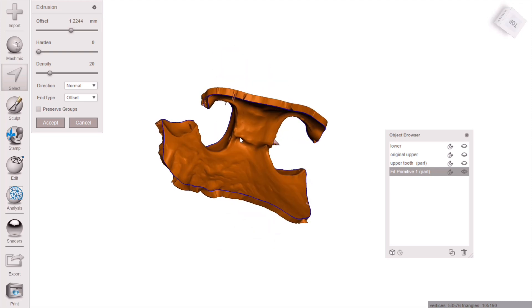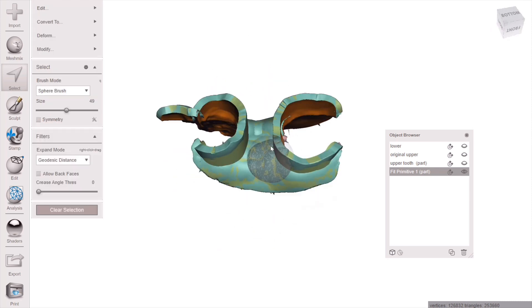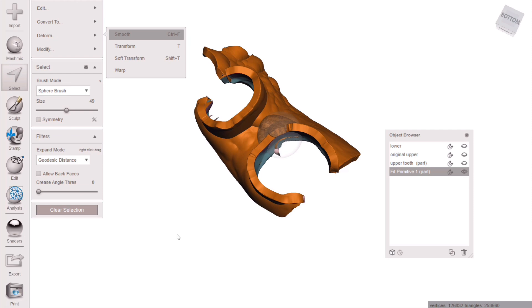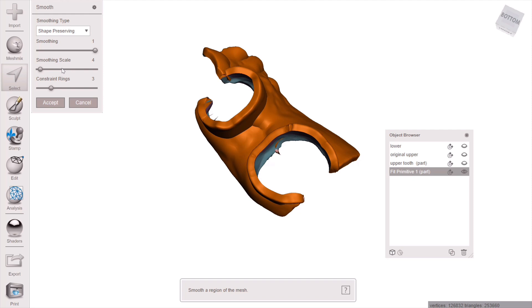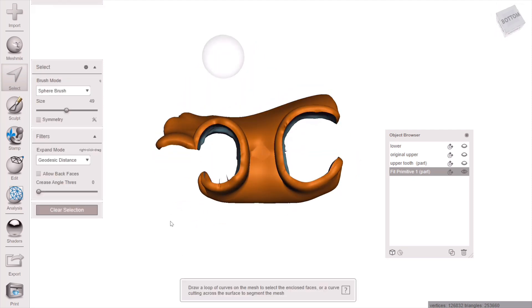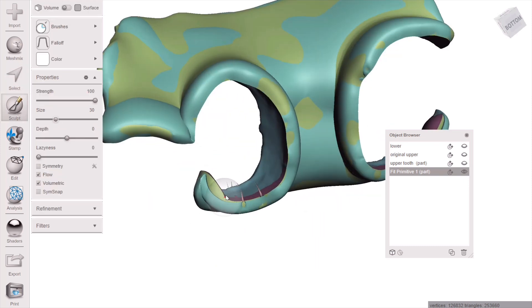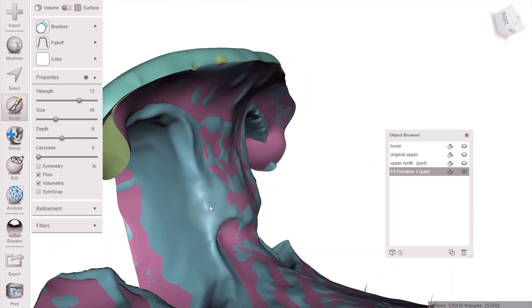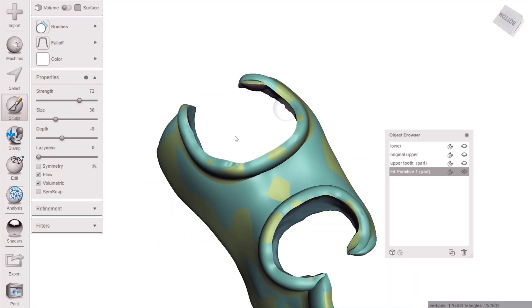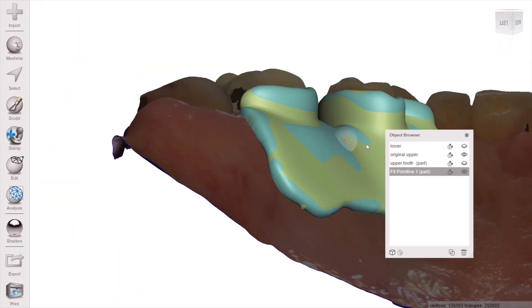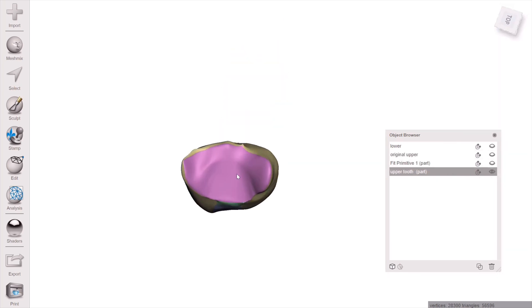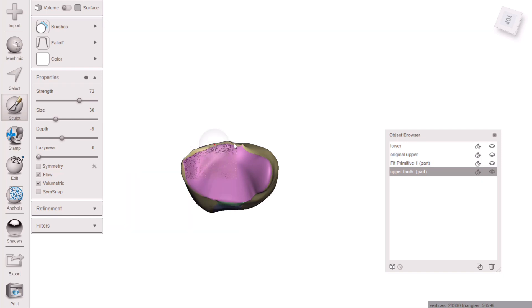Select the mesh and hit D on your keyboard for Extrude — D as in 'dog.' Go to Normal Offset and make it 1.2 to 1.5 millimeters thick on that slider, then hit Accept. The intaglio will be highlighted — hit I for Invert so the cameo is highlighted, then go to Deform Smooth to create a smooth surface. Accept that — sometimes you'll get errors when you try to smooth that cameo border. Then go to Sculpt > Robust Smooth and smooth out any little spikes. This is very advanced; for most people it's worth just buying Exocad and doing this in like two minutes.